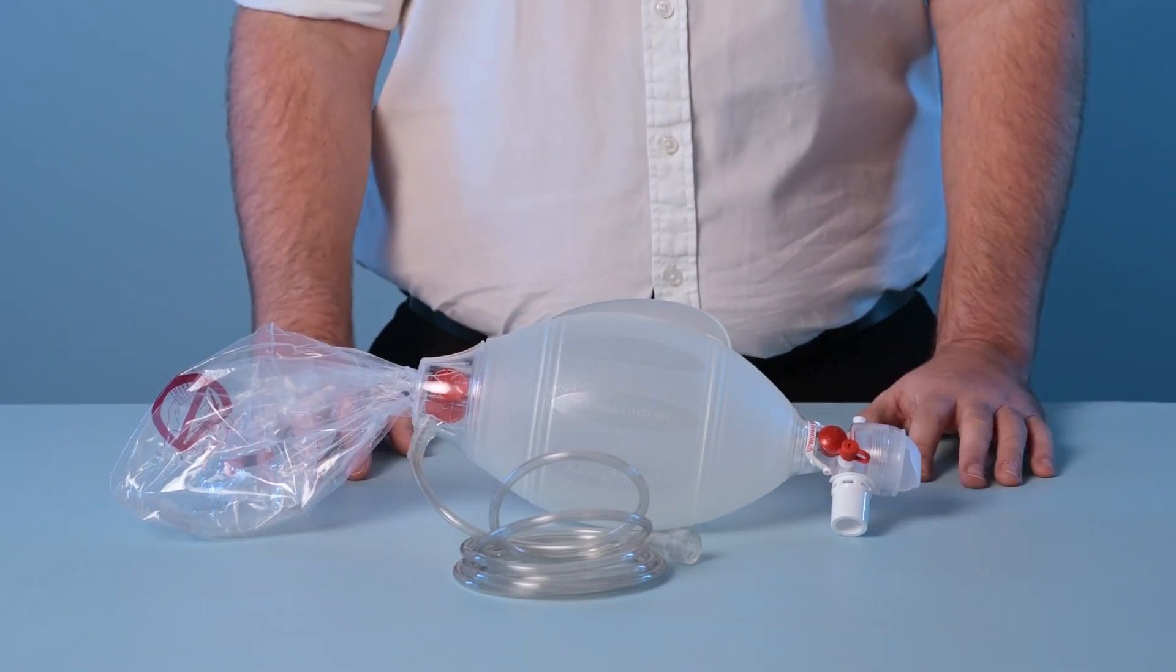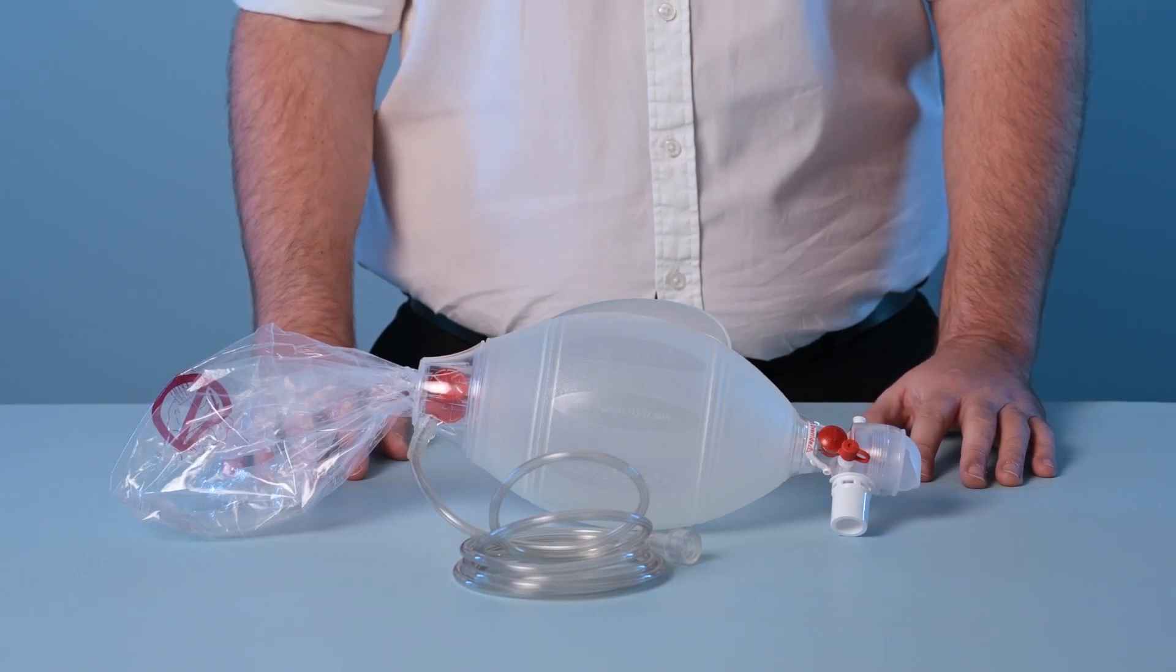Today the Spur2 represents Ambu's latest development in resuscitator technology.